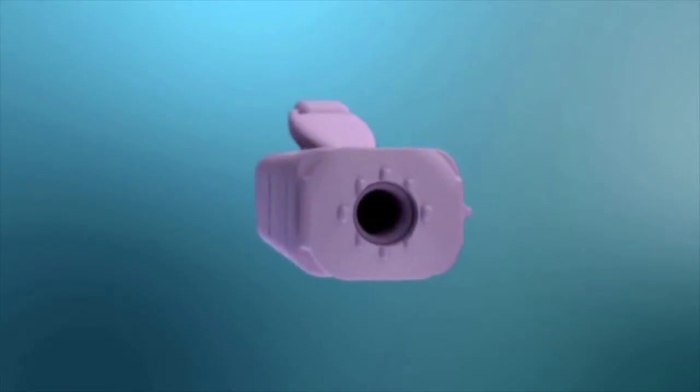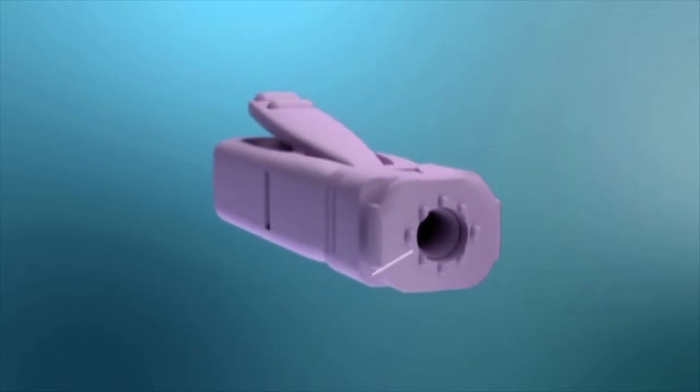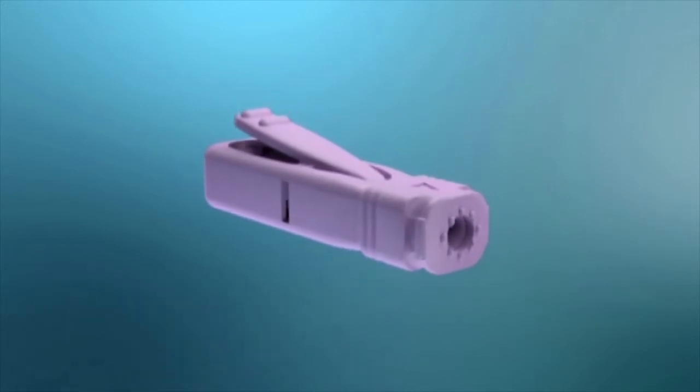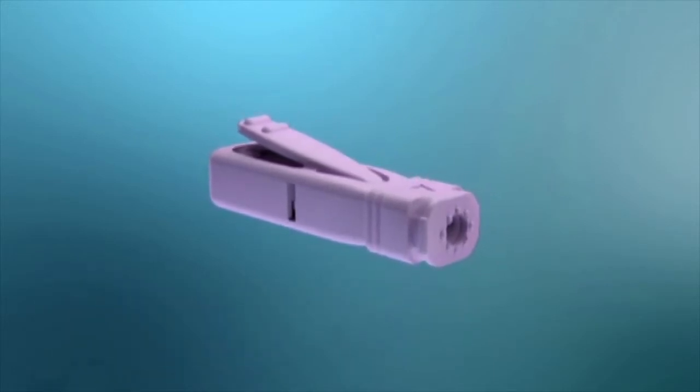Unlike other lancing devices, UniStick 3 features unique Comfort Zone technology that uses eight raised points to apply pressure on nerve fibers in the fingertips.